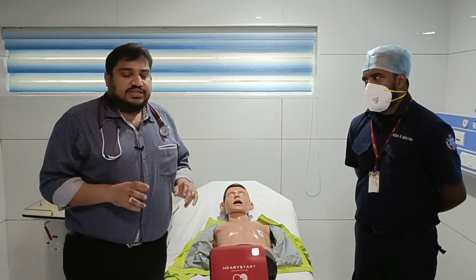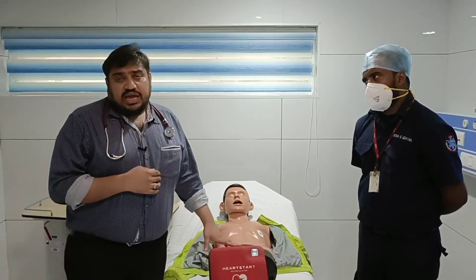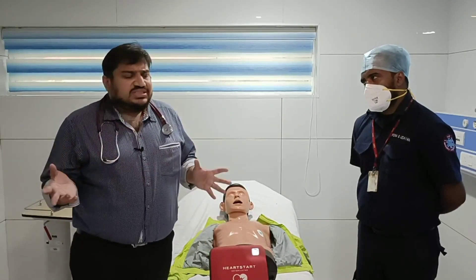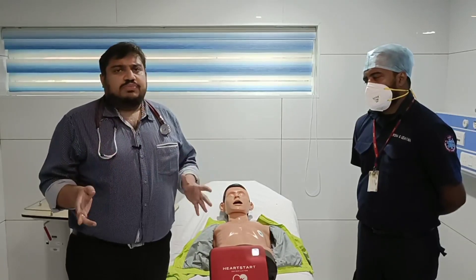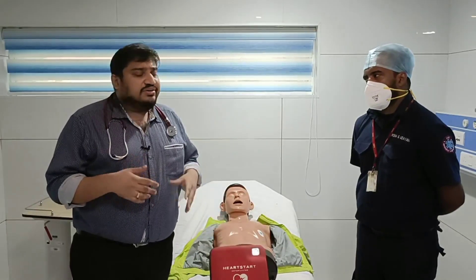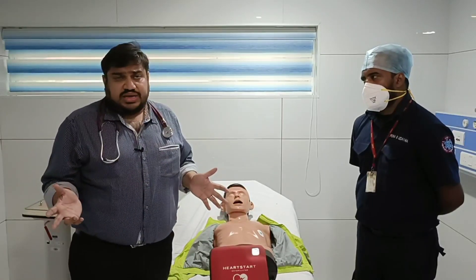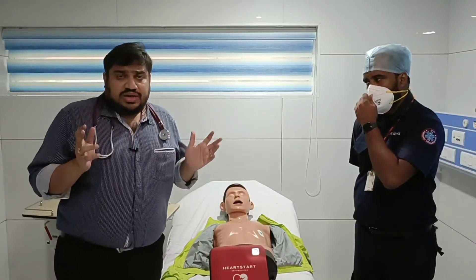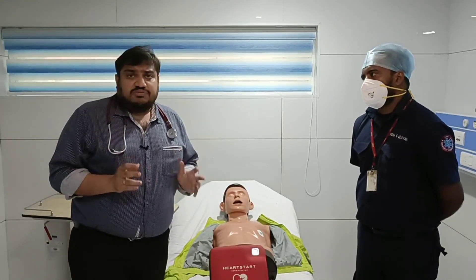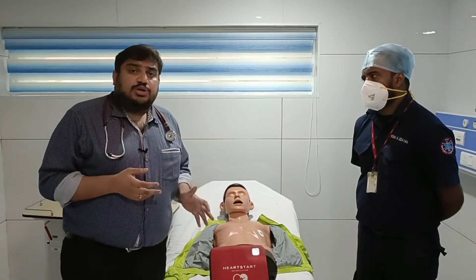Now we have discussed the defibrillator. The next thing I'd like to discuss is the AED, that is the Automated External Defibrillator. When you go to busy places like an airport, railway station, or a mall, you will see something called a heart revival machine. It will have different names in different areas, but the real name is an AED — Automated External Defibrillator.